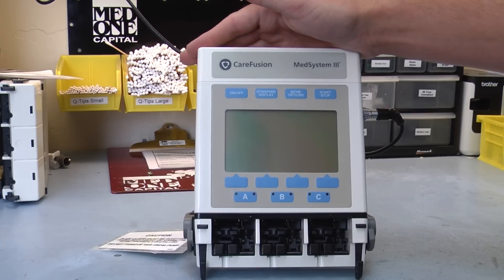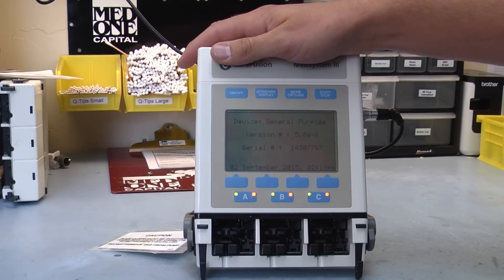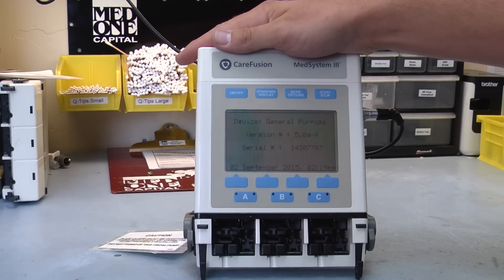and it's a great portable pump, and the main features of it that the companies are really liking about it is the three channel pump.